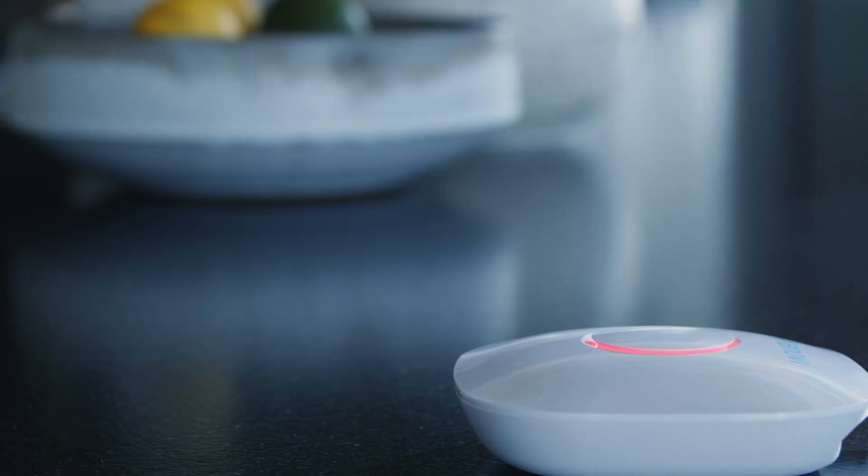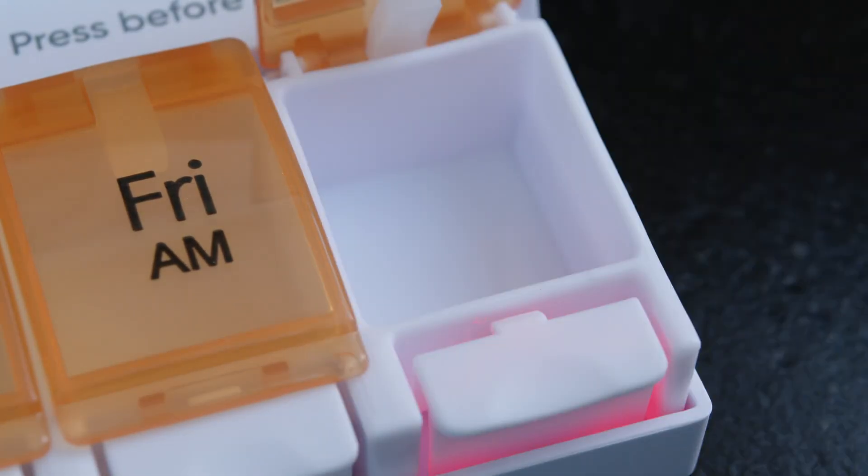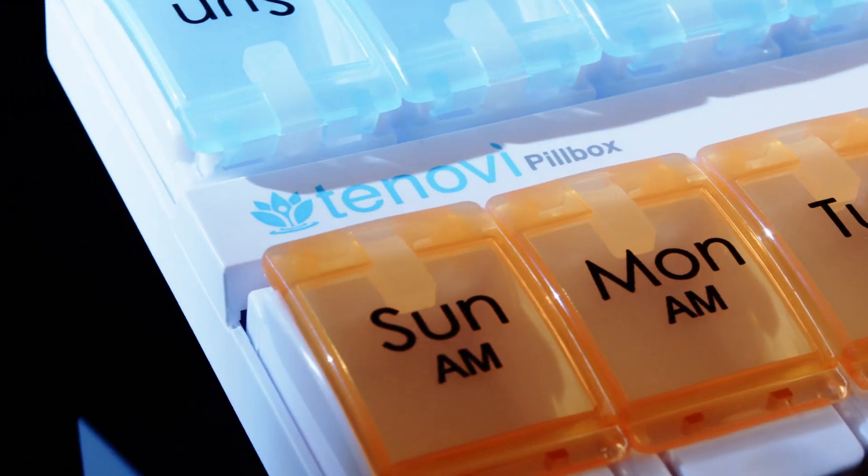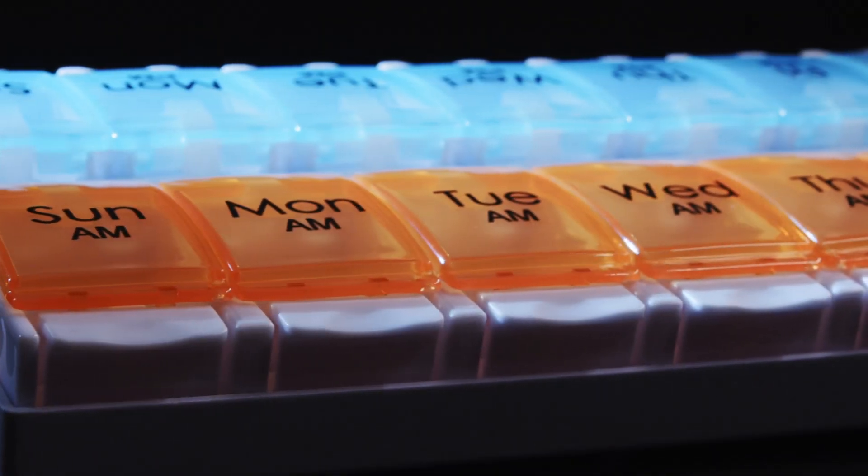The Gateway LED will turn red every morning. Take your medication as often as prescribed by your physician. Unless otherwise advised by your healthcare provider, we encourage you to read through the user's guide for additional information.